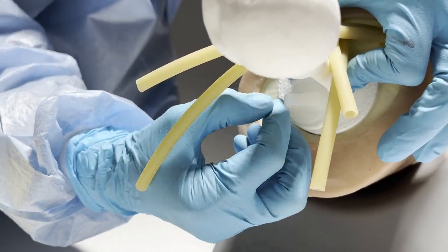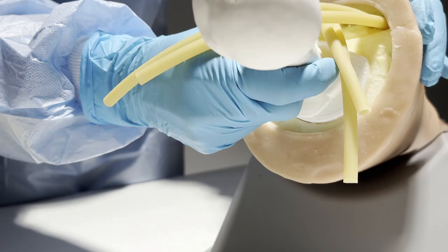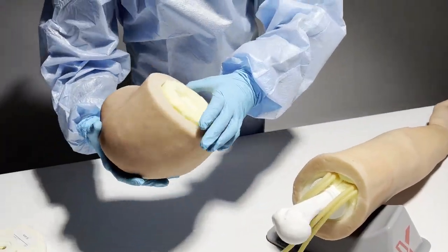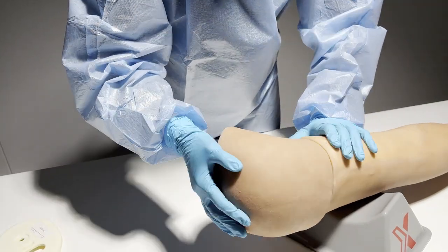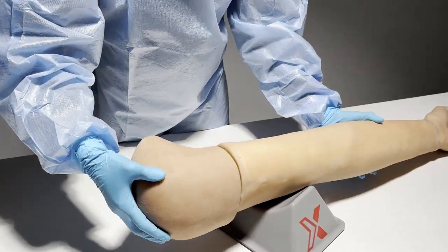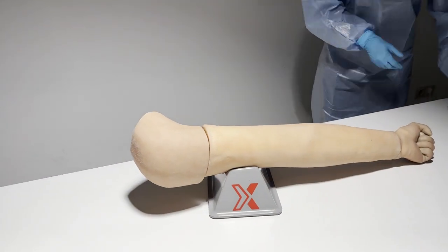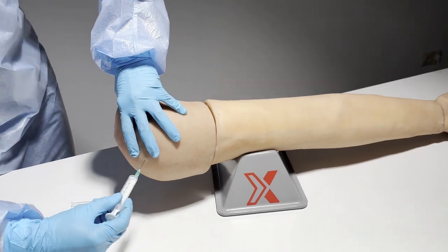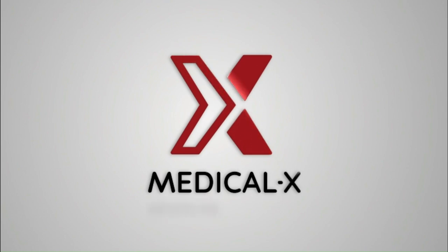Make sure that you fixate the bone to the arm. When the screw is screwed on and the bone is attached to the arm, you can place back the deltoid. With the deltoid attached to the arm, you can perform intramuscular injection training.